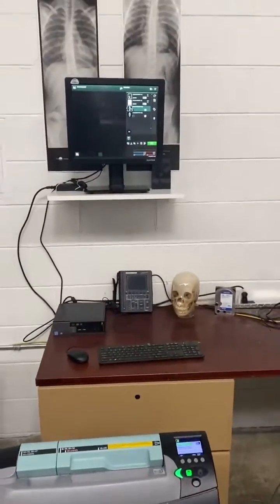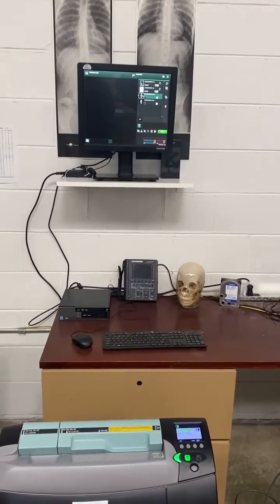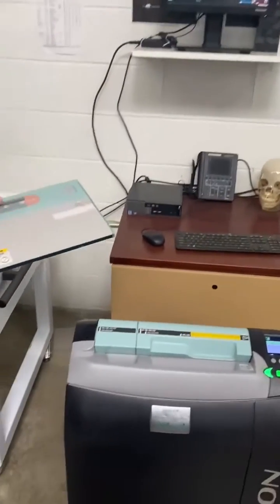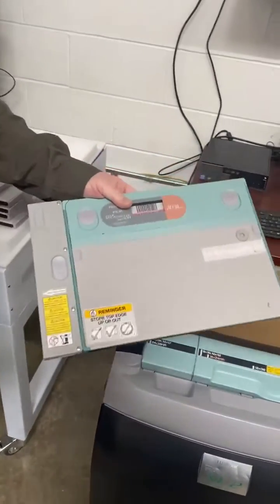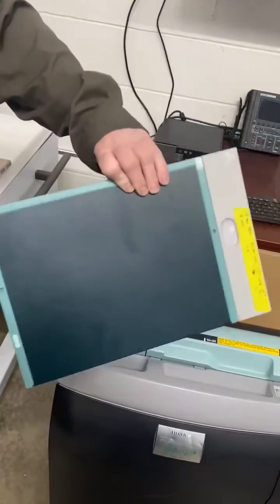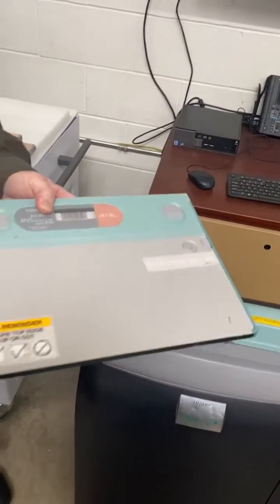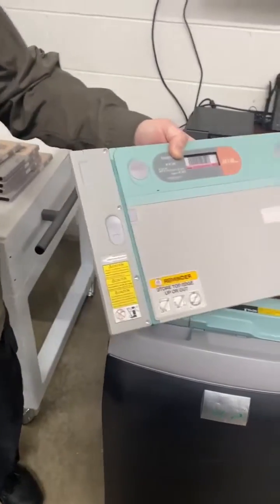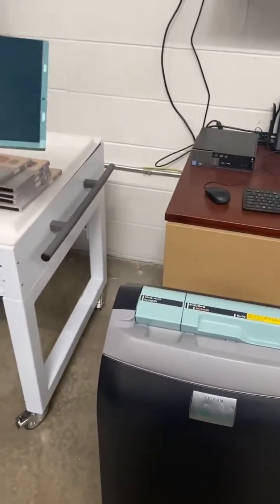The problem is that it was never used in the U.S. for mammography — it was never approved. So they didn't have these cassettes that come from Fuji, type CH. They're very expensive, very hard to find, and we never have these available anywhere.